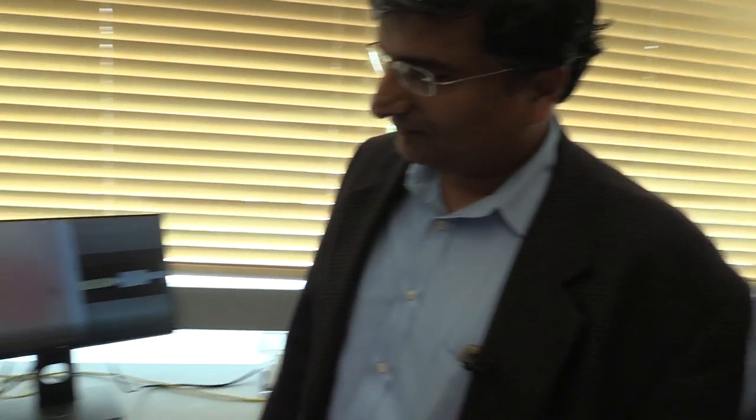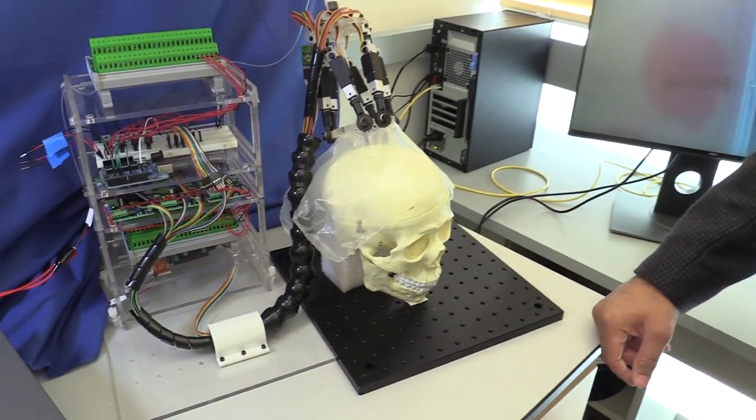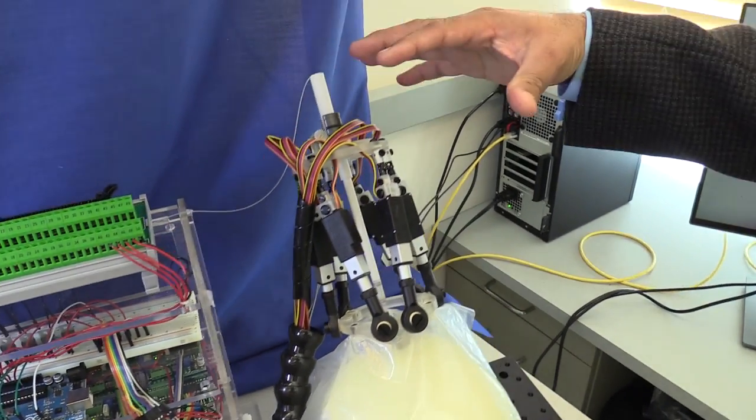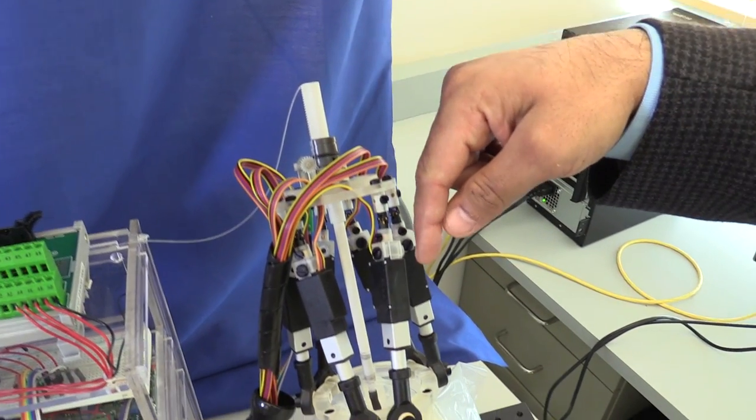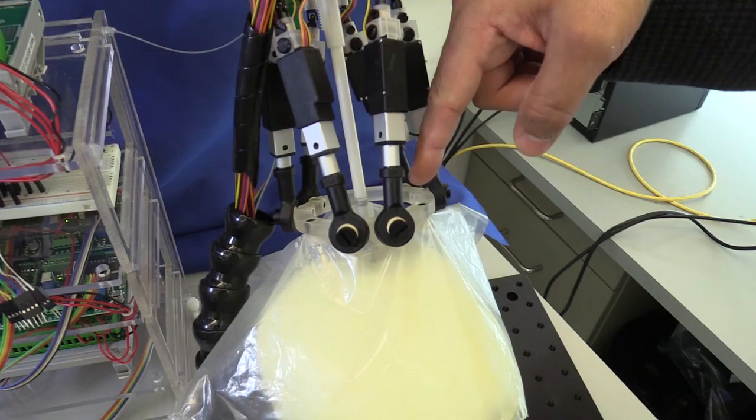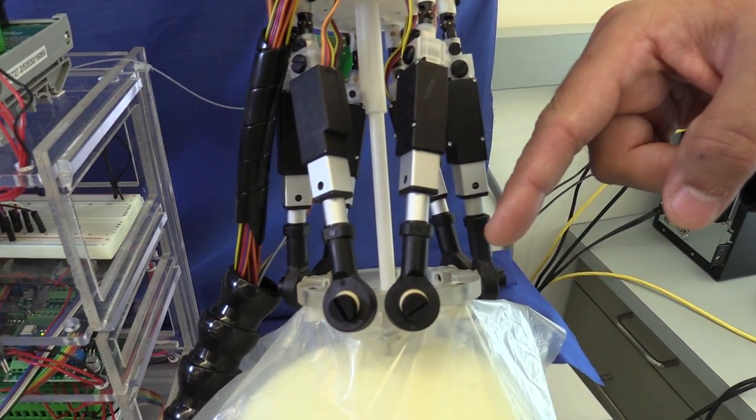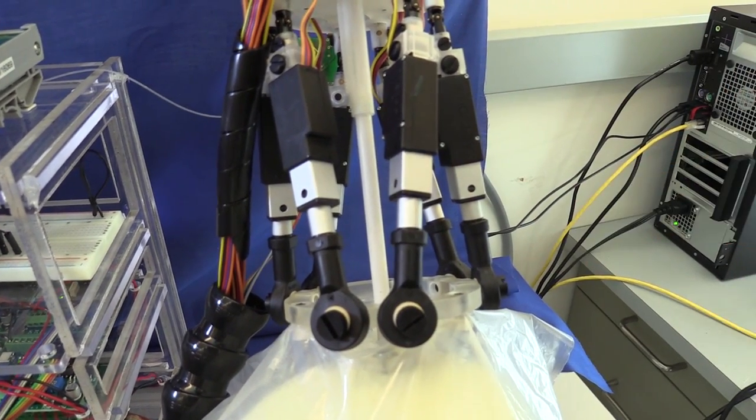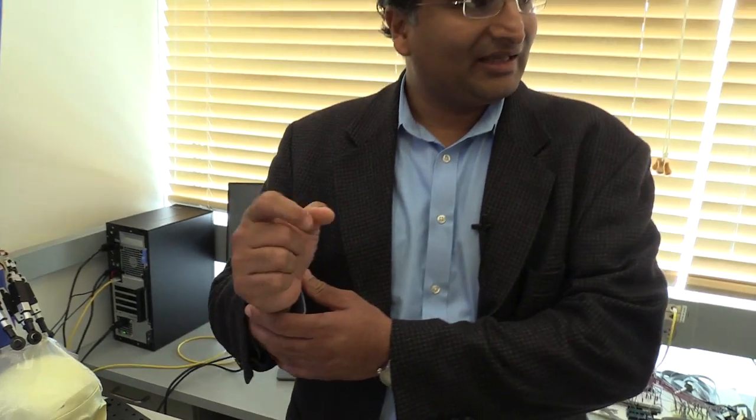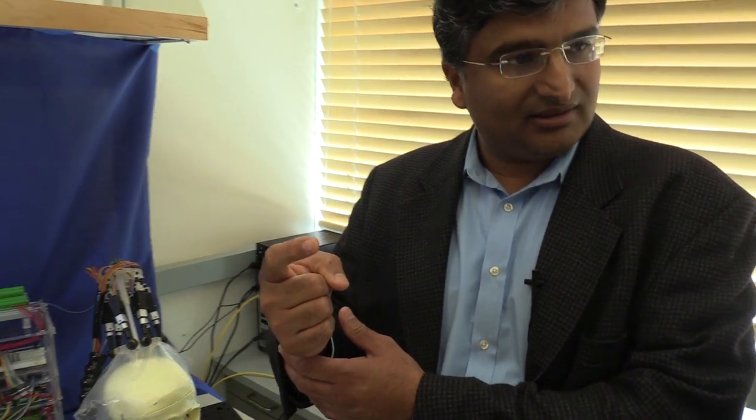This is for brain hemorrhage, but again, a robotic device that goes into the brain that is very flexible. Right. So as you can see here, he is able to position this for accurate insertion point into the brain, and now he's advancing the robot inside. And once you're inside, you can now pretty much, this robot has the ability to have the roll joint motion capability and a tip that you can bend.